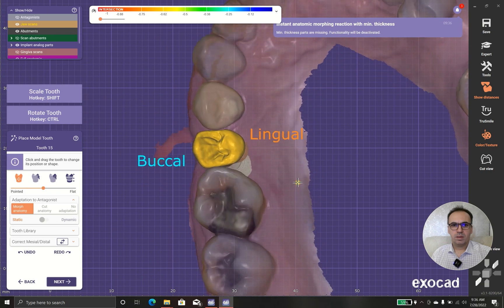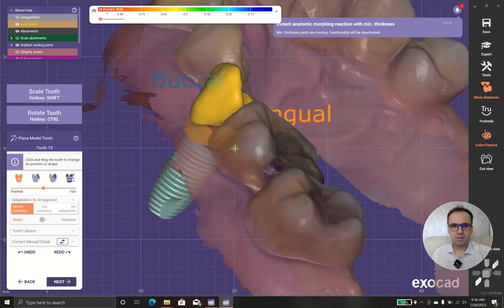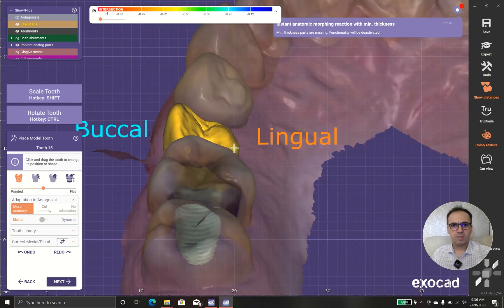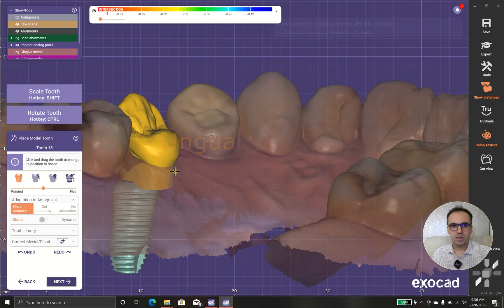It gives me a tooth but I'm not so happy with that because I think it should be okay.